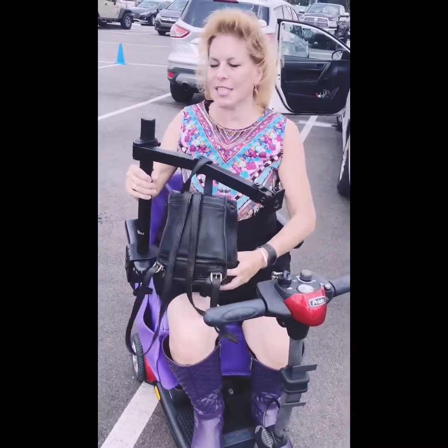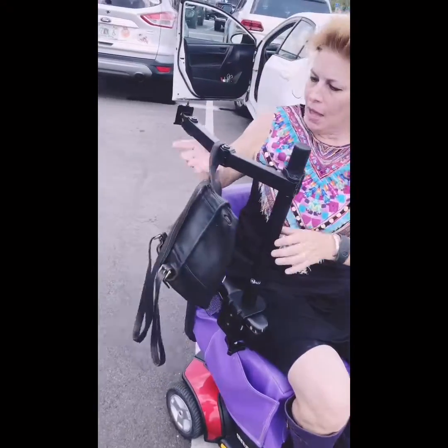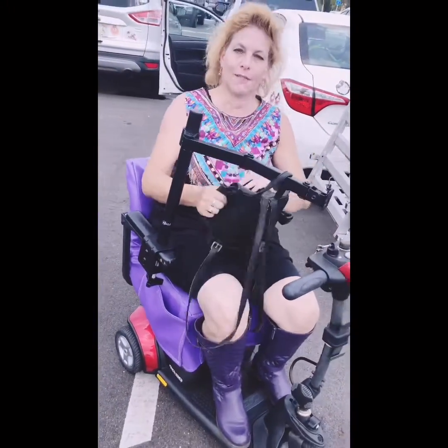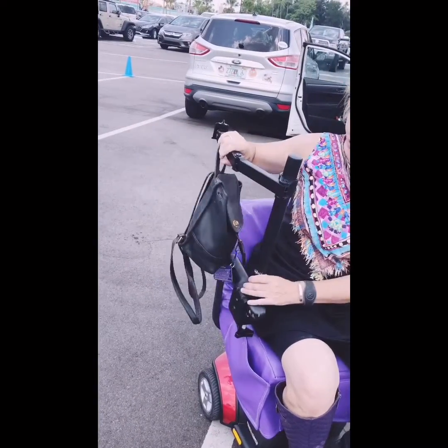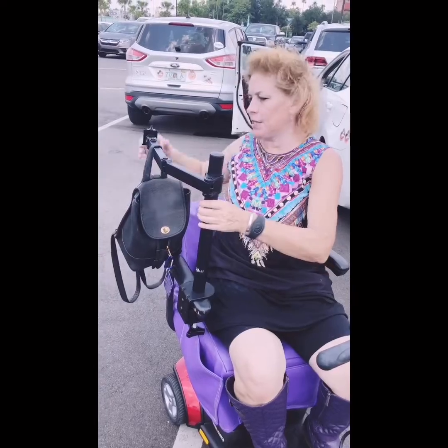This is a TV mount — best I could find so far. You can just swivel it around if you're really fragile and can't even lift a purse or your backpack. You can open it up and get your chapstick out. But I've been stuck where I can't walk and everybody's gone and I need a chapstick — I couldn't get anything. It is so frustrating not to be able to get your stuff off the back and be helpless without any help and without your stuff.